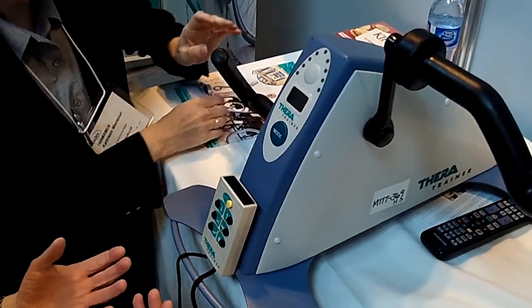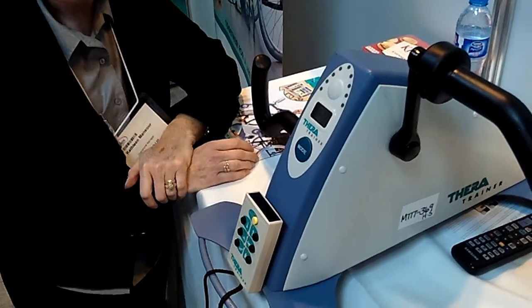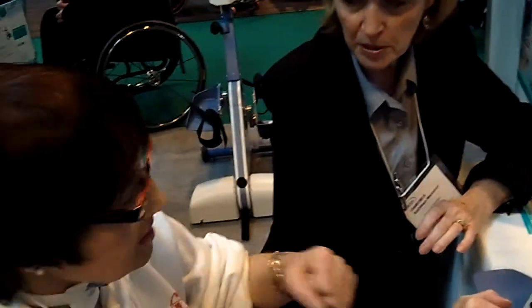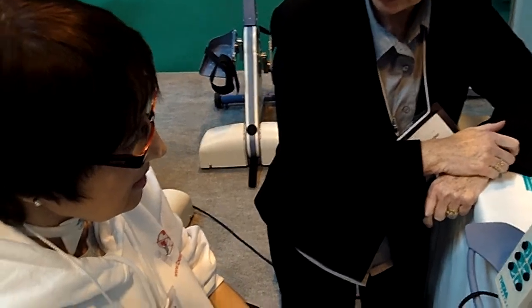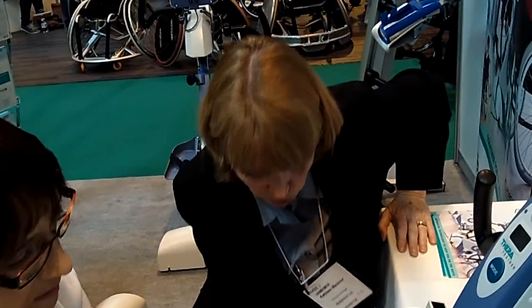How heavy is the manual one? I'm thinking the two legs are sitting apart with a tray or something on here — it's not on your legs. I'd need to sit on your breakfast bar. It can't break this bar. It's very substantial. It could be too heavy for the table. What weight is it for the manual one? I really don't know.